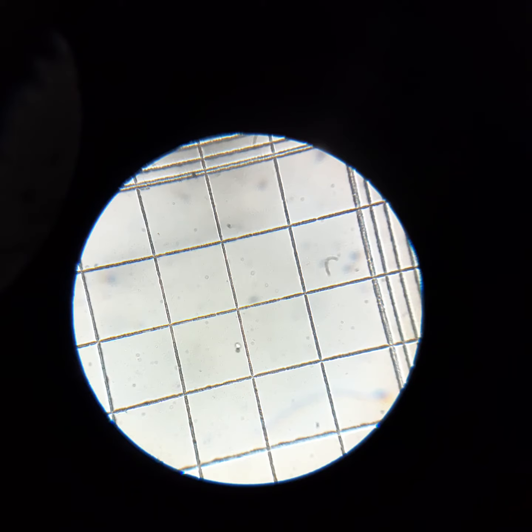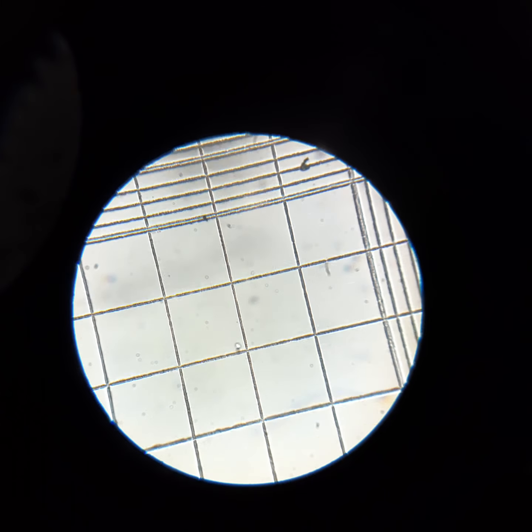Hello everyone. So today on the screen what you are seeing is the picture of the hemocytometer, which is also called the Neubauer chamber. Particularly this is used to do cell counts. The area that you are seeing here is used to count the WBC. To count the WBC on the Neubauer chamber we have a total of 4 areas.